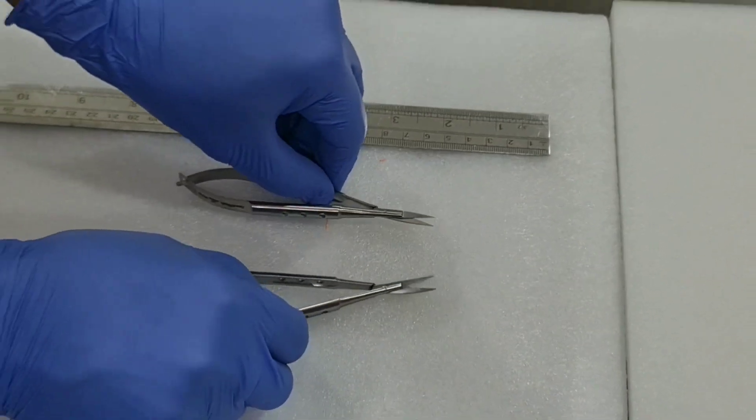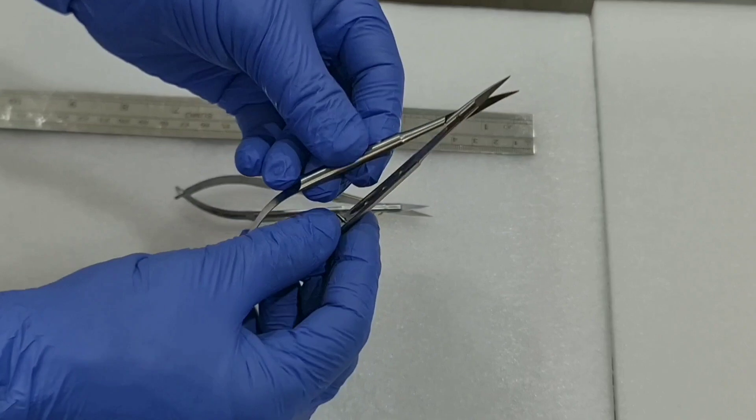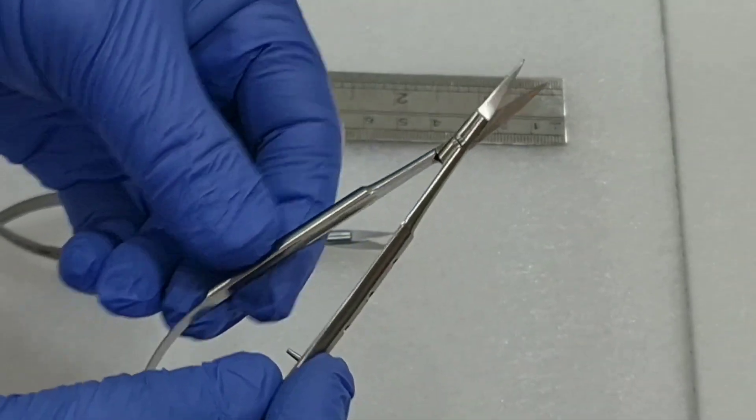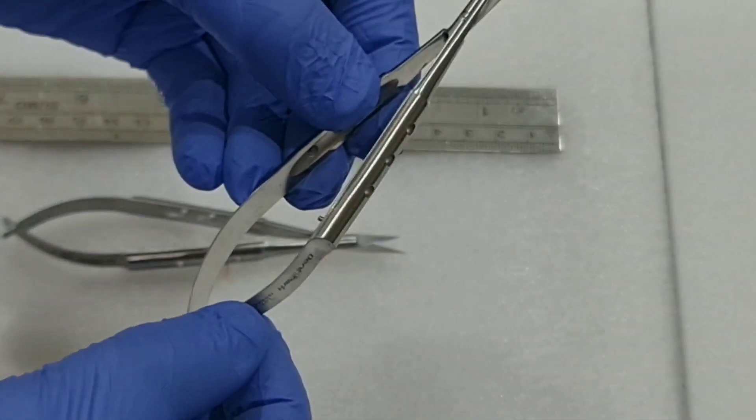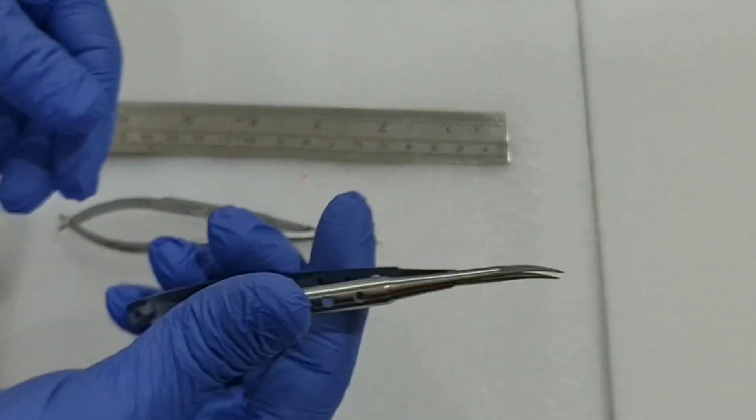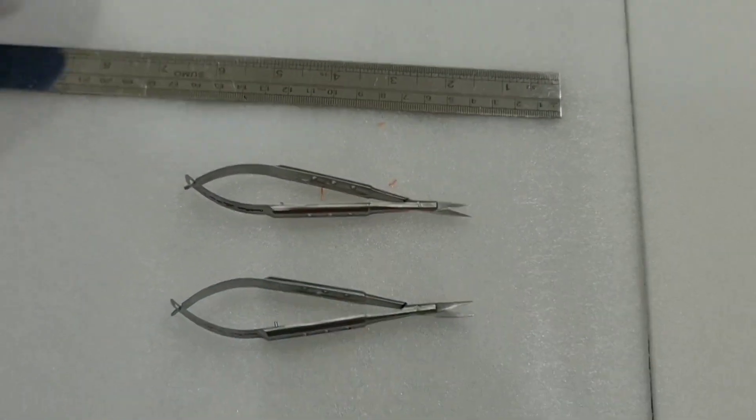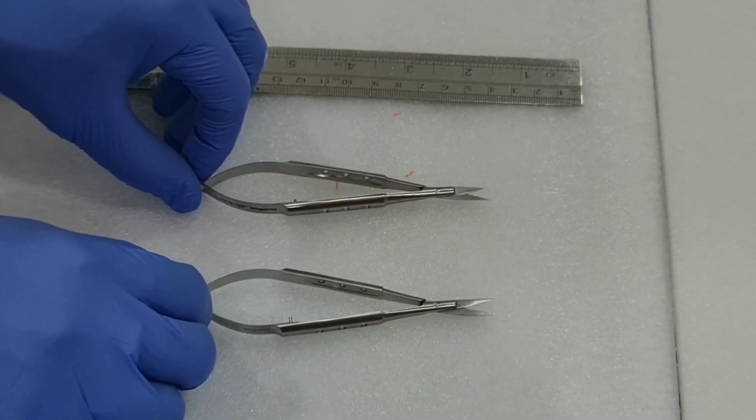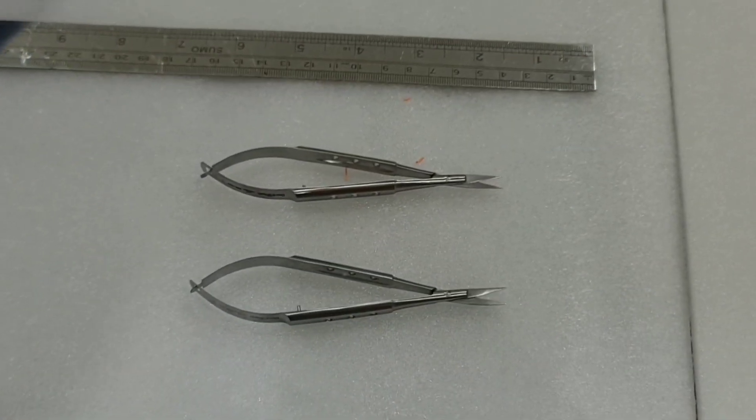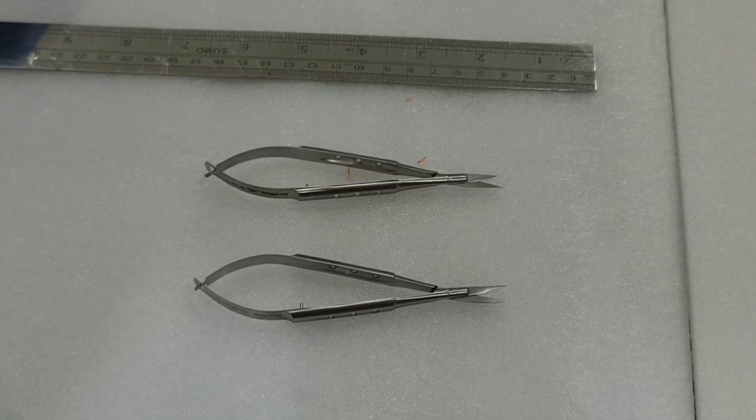It is very easy to use. The handle is completely not like others with the thin strip, so it is long life. You can buy this product online from our website Dantmar. You can also download our mobile app. Thank you.